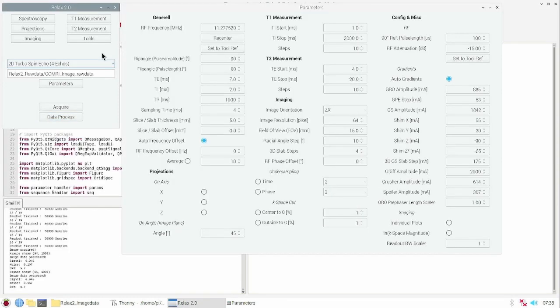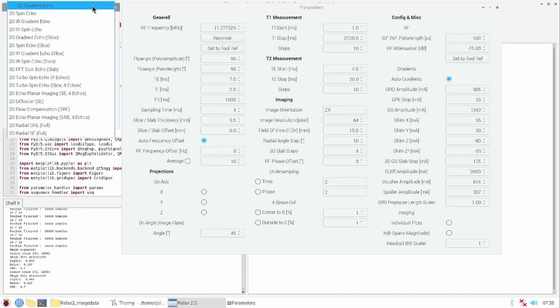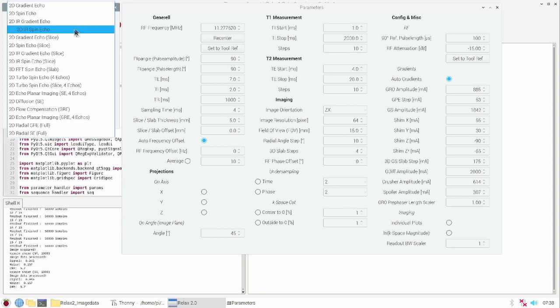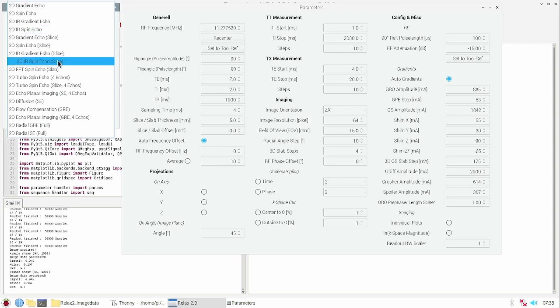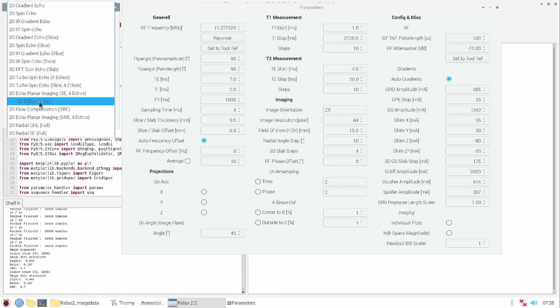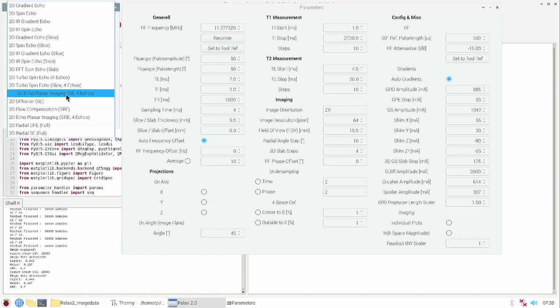I want to show you the imaging sequences I implemented in the last months. We have 2D gradient imaging, spin echo imaging, also as inversion recovery and with slice selection. We have 3D imaging, turbo spin echo imaging, also diffusion and flow compensation imaging. And the first glance of echo planar imaging, which is really hard to implement and not fully functional yet. Also radial imaging like I showed in the beginning.